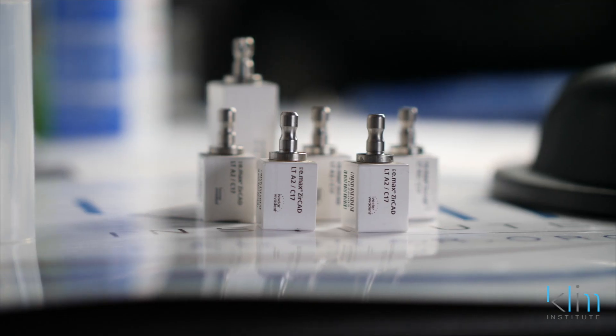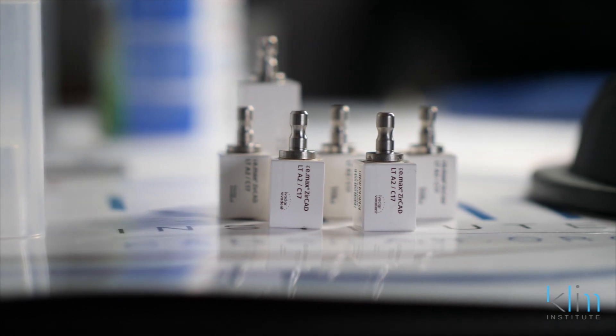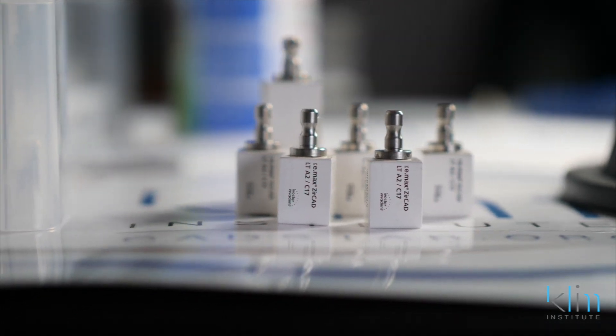The way it works for me is I do use it on colored blocks. Why? So these base colors and effect colors are more accents just to tone in the multi-effect and bring down the value of the cusp tips. I have found it very effective for me even using this system on other zirconia brands.